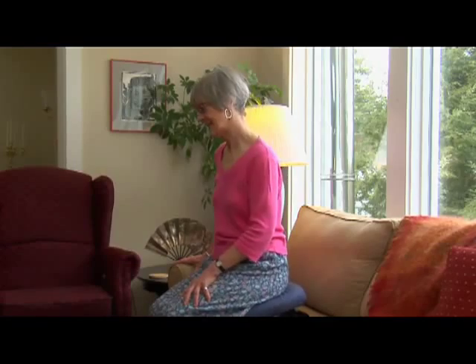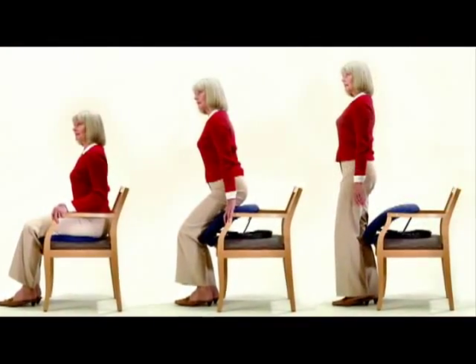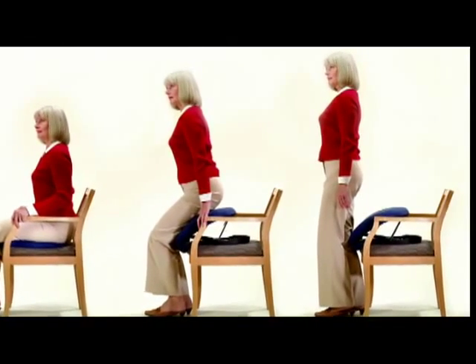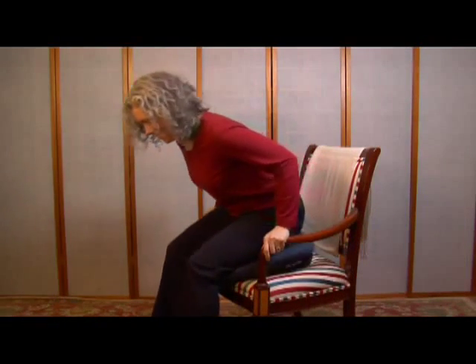To rise from your armchair, place both hands in a secure position on the armrests, or use an armrest and one of your legs, then begin to stand and the Seat Assist will gently help you rise. The Seat Assist can lift up to seventy percent of your weight, which allows your muscles to stay strong and enables the Seat Assist to help you a little or a lot, adapting to your needs and abilities from day to day.